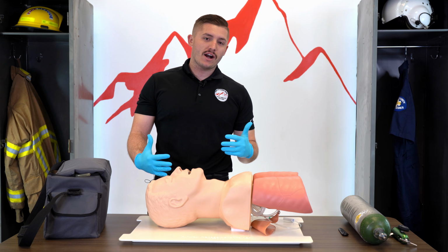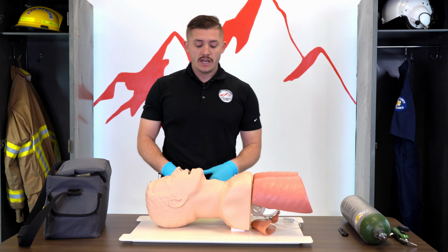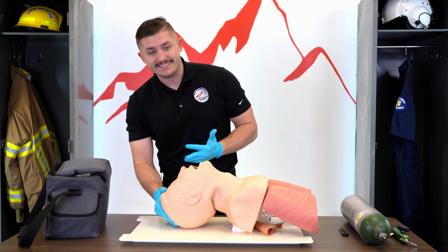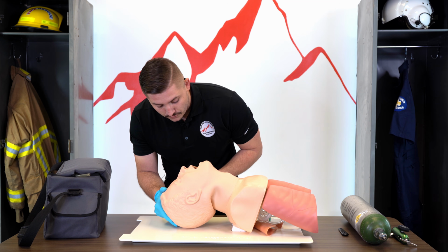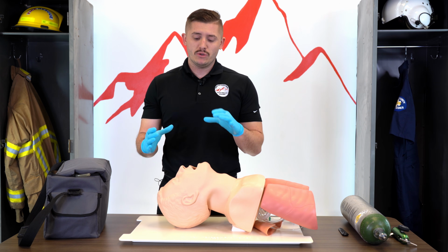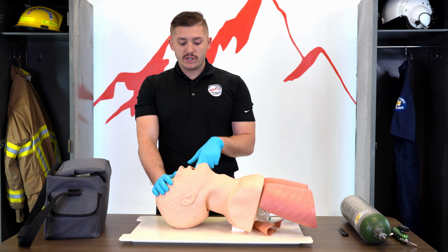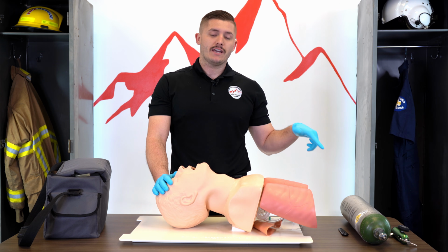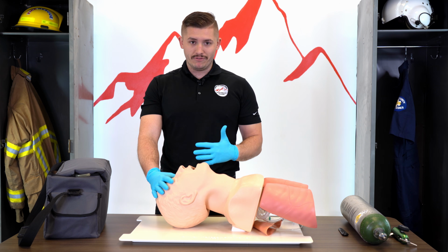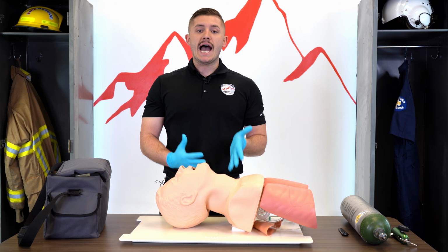Okay guys, now that we've talked about how to position an airway, let's start talking about suctioning. So say I come up to my patient, they're unresponsive, I'm going to do my head tilt chin lift and assess the airway. Say it's full of secretions, I have vomit, I have fluid, I have blood. If I start to use a BVM and breathe for this patient, I could be putting those secretions or that vomit into their lungs and causing them to aspirate. I could be trying to force it into the stomach, causing them to vomit even more. But at the end of the day, I'm not giving adequate breaths.